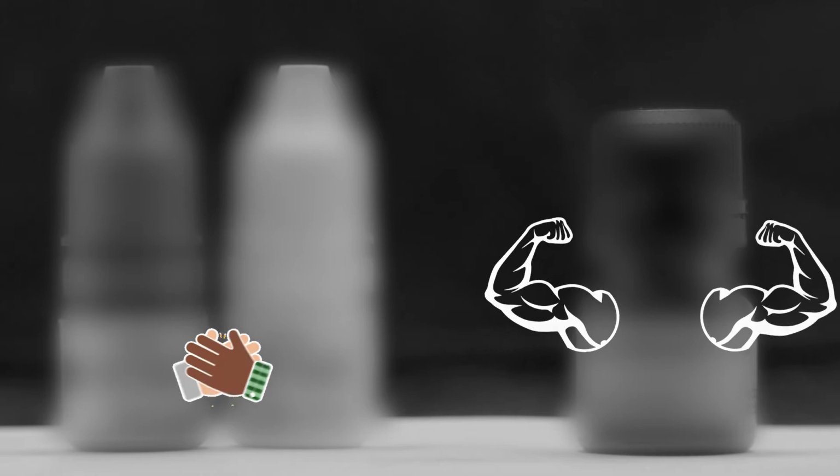Then follows the stage of silanization of the ceramic surface in order to improve adhesion. As we know, silanes are single component and two component. The main difference is that single component silanes are already pre-activated, while the two component ones require activation.